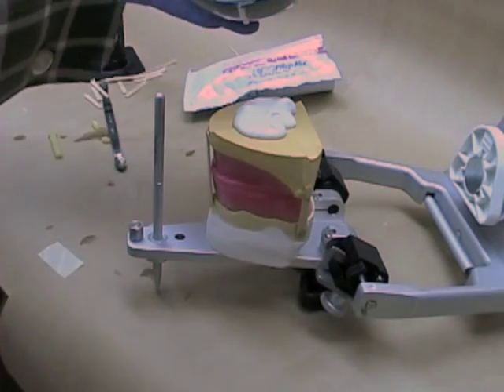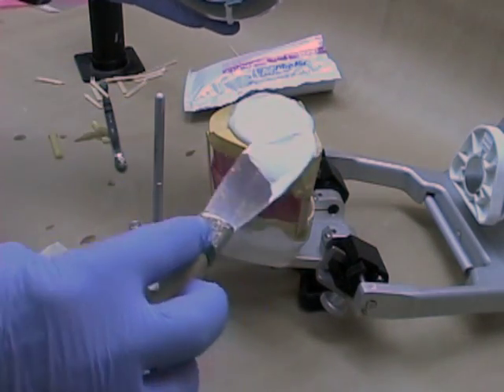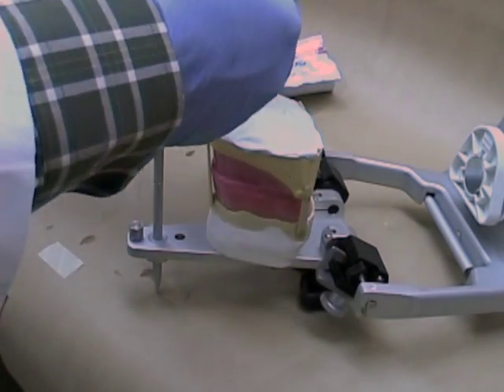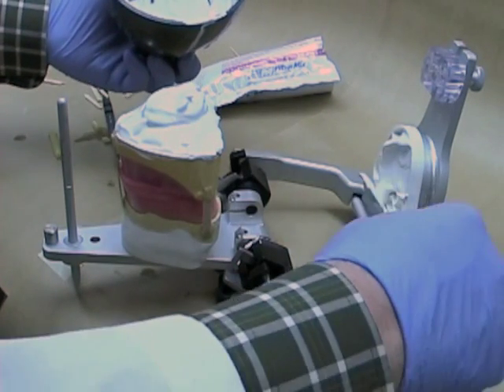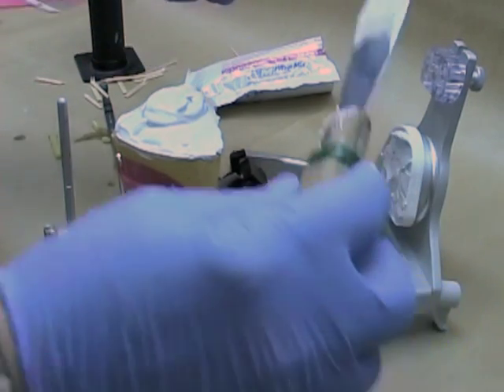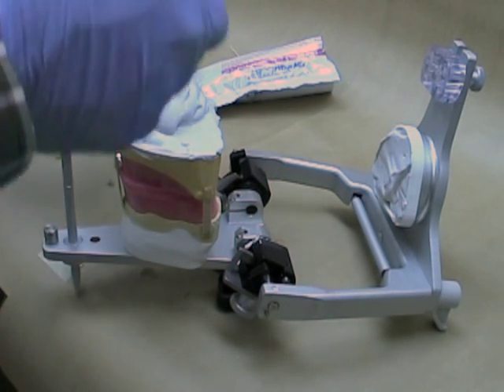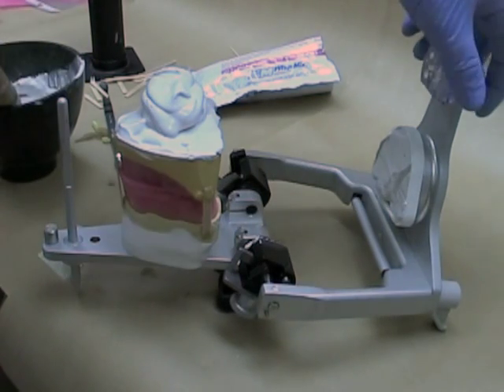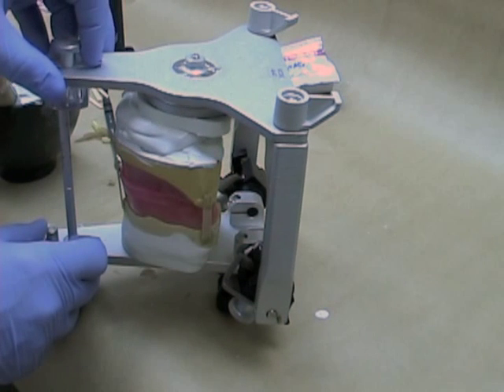As we described for the maxillary cast, mound up the plaster in the center of the cast and taper it to the edges. Make sure that the plaster fills in the rounded grooves that you placed in the mandibular cast, and that the mounting plaster is pressed firmly into the undercuts of the mounting plate. If you measured a large distance between the cast and the mounting plate, add some extra plaster right in the center — don't bring it right out to the edges just yet — so you'll be able to close that down and the excess should squeeze where it's needed.